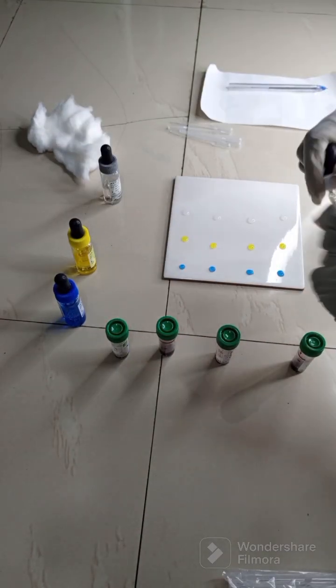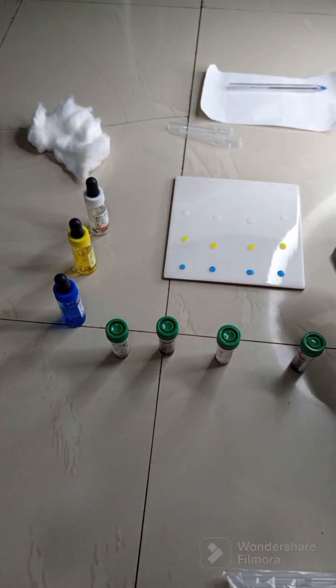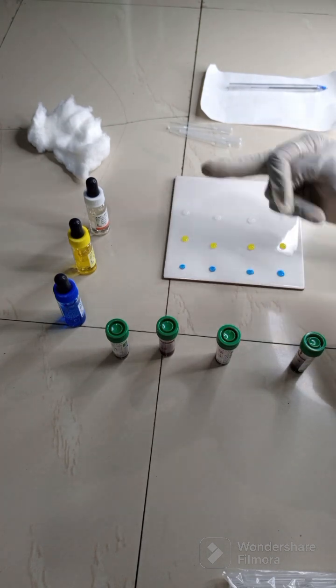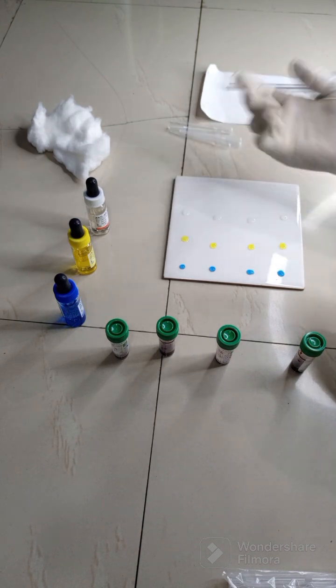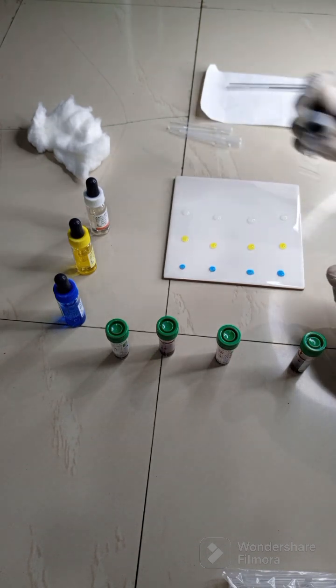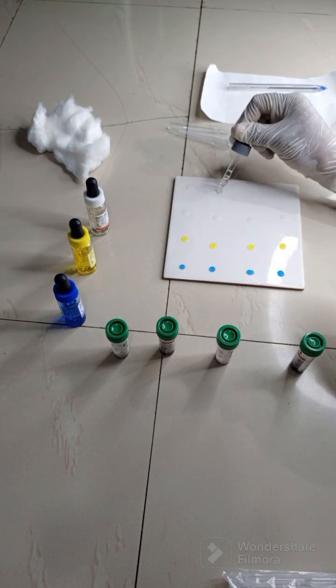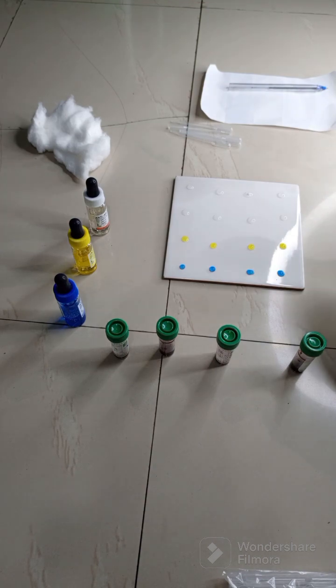This is anti-AB. Note, you can leave out this AB because if A reacts and B reacts, AB must react, but we just use it as a confirmation sometimes in case something is wrong with any of these, but you can leave it out.